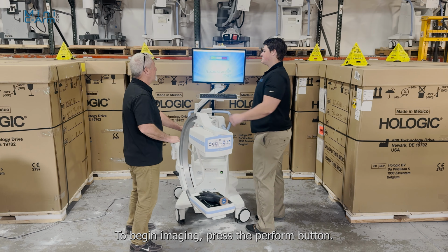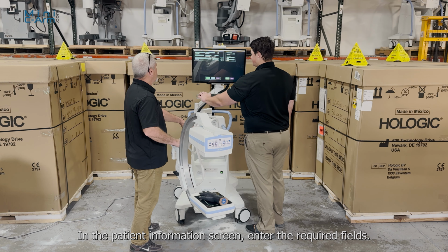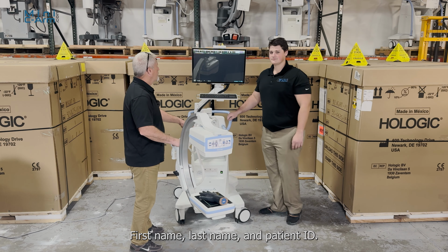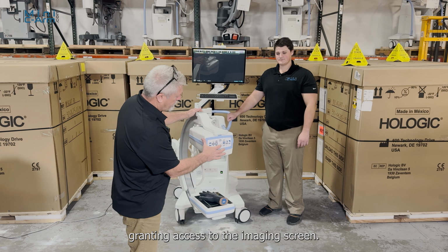To begin imaging, press the Perform button. In the patient information screen, enter the required fields: first name, last name, and patient ID. Once filled, the Perform button will activate, granting access to the imaging screen.